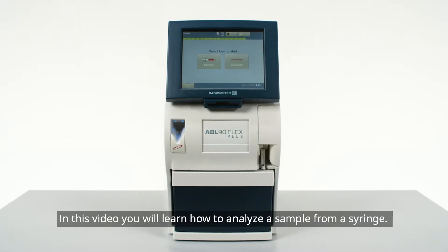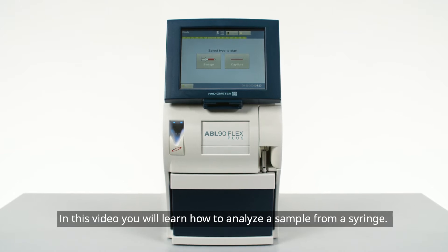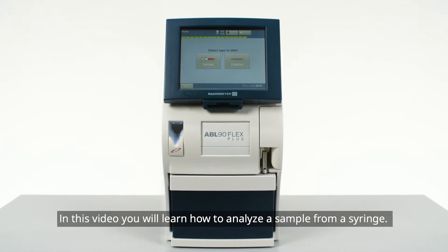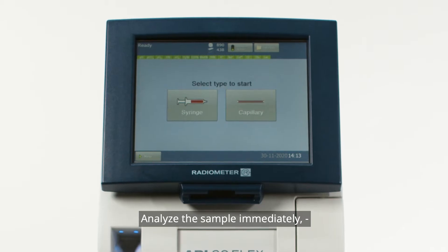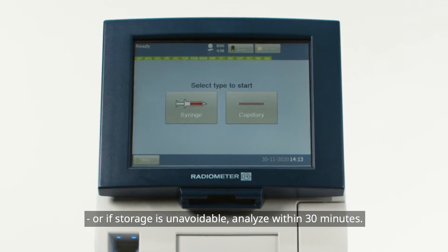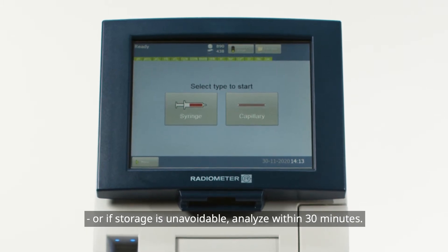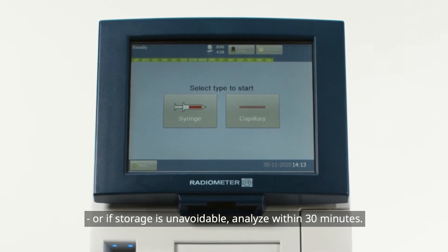In this video, you will learn how to analyze a sample from a syringe. Analyze the sample immediately, or if storage is unavoidable, analyze within 30 minutes.